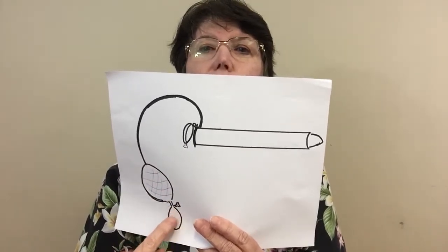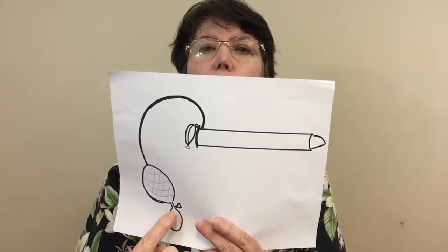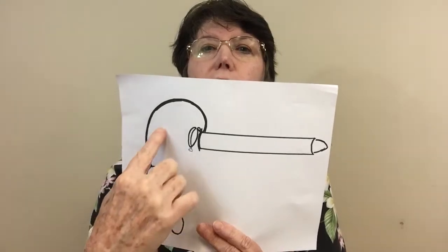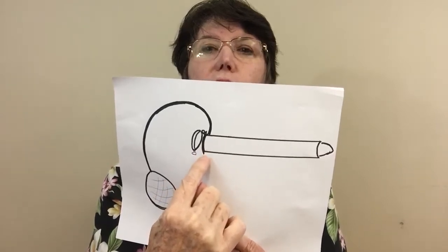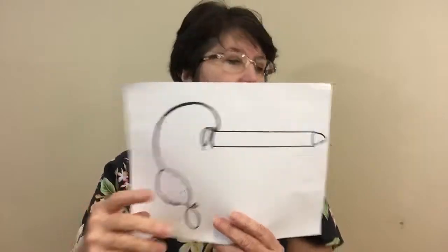Then you have the little balloon that you actually squeeze. You close the valve and now you have a one-way valve — every time you squeeze it's going to push the air in. On this lid you have a little screw, so when you close the lid you can actually screw it shut and then you have your seal that you need.